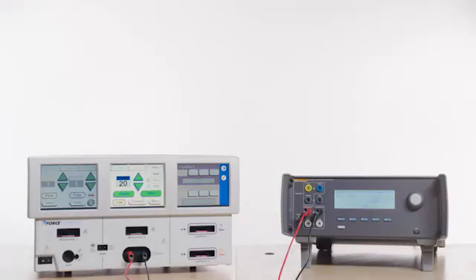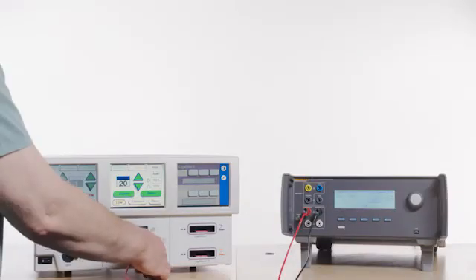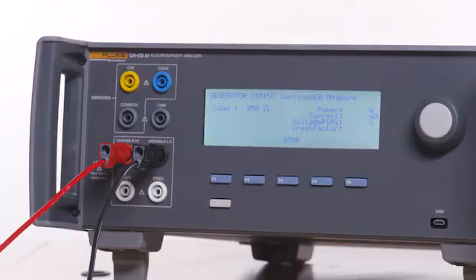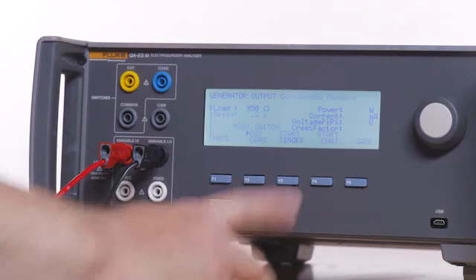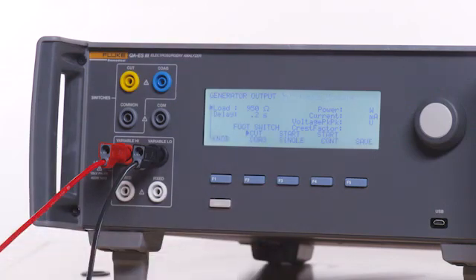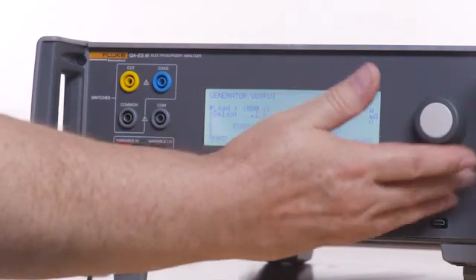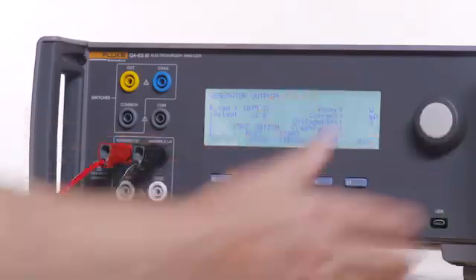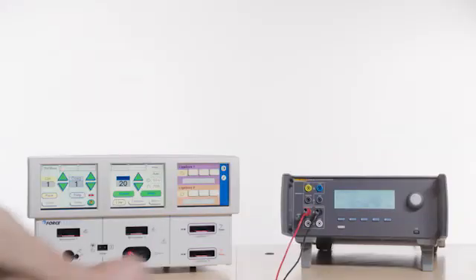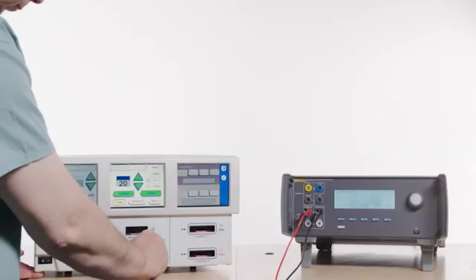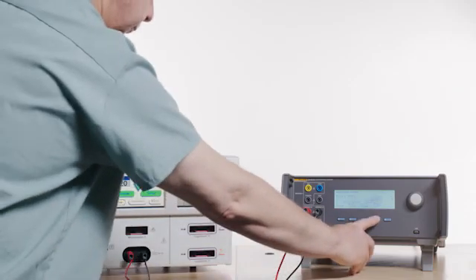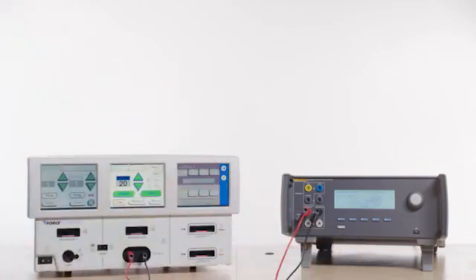Once again, remove one of the test leads from the Force Triad and verify RF generation stops. Press F3 to pause the test, then select 1075 ohms. Reconnect the test lead to the Force Triad. Press F4 on the QAES3 for start continuous.